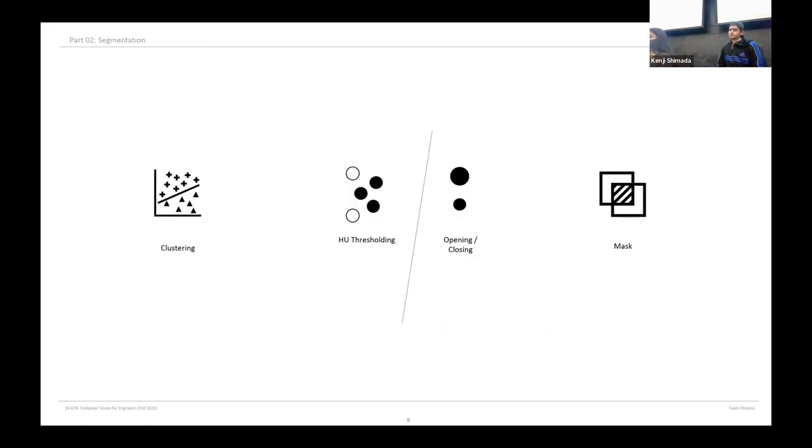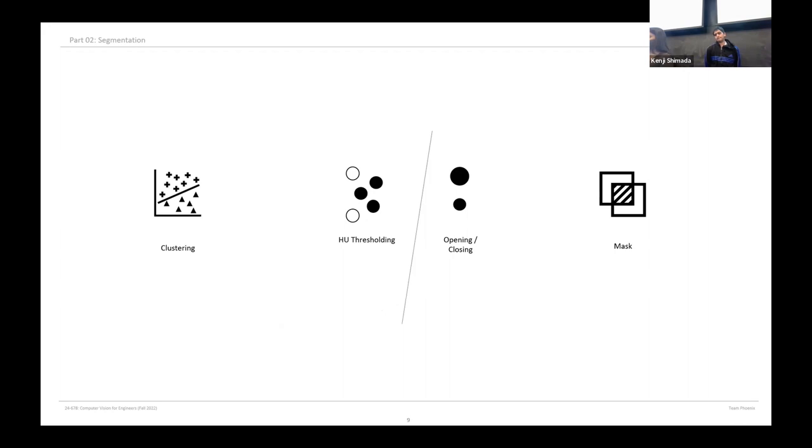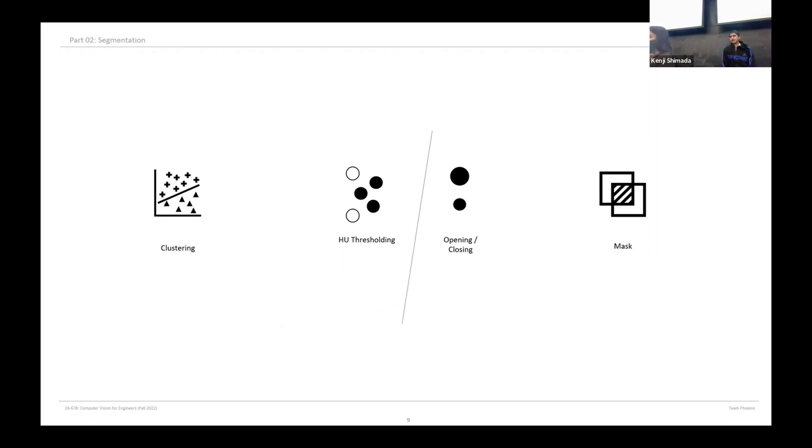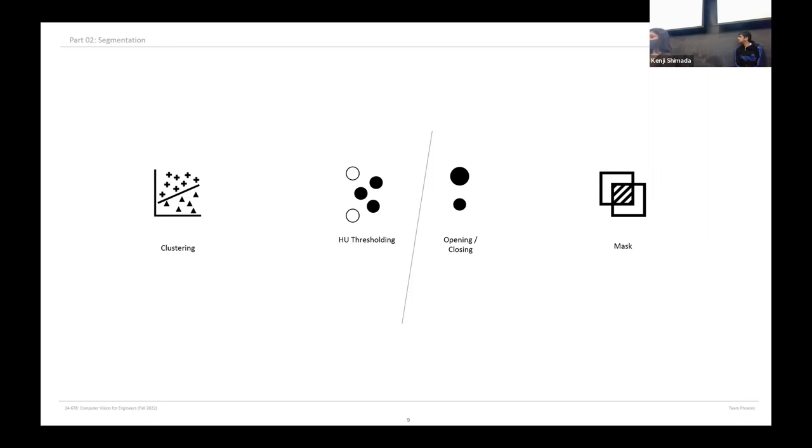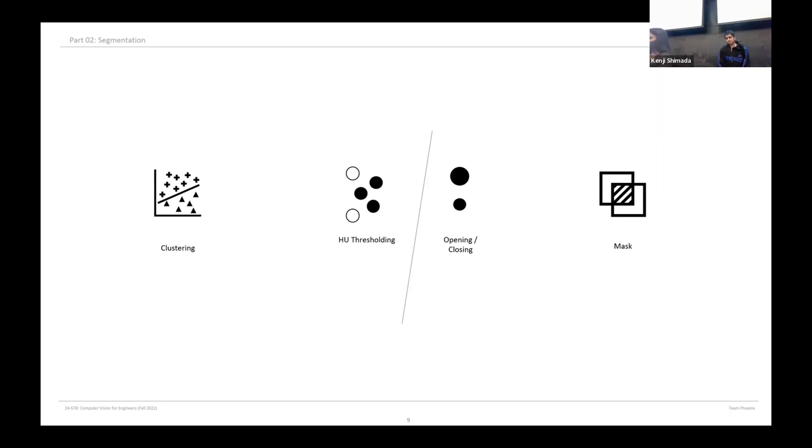To address the question of segmenting tooth information and exploring the application for tooth detail analysis, we first perform clustering to identify and locate different groups of information such as bones, muscles, air or holes. We explored two clustering techniques, K-means and mean shift, and compare the results. After grouping the images into different clusters, we threshold out the bone class on the previously resampled DICOM images for tooth segmentation. For tooth detail analysis, we perform opening and closing using erosion dilation to remove any tiny features like overlapping gums or muscles or the noise from the imaging to get clarity. Then we create a mask out of these clustered data to lay the groundwork for analysis.